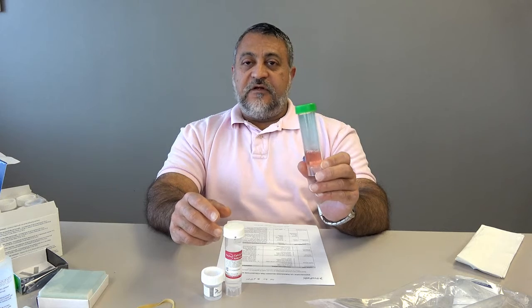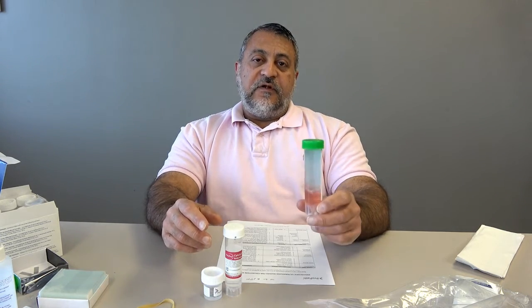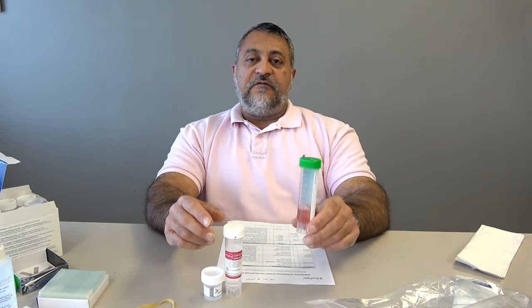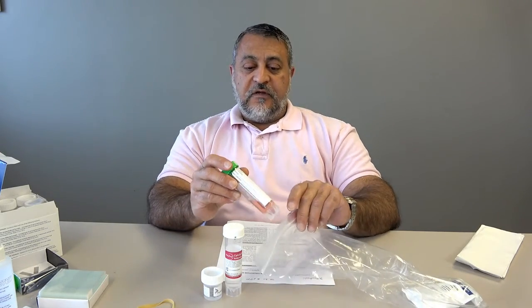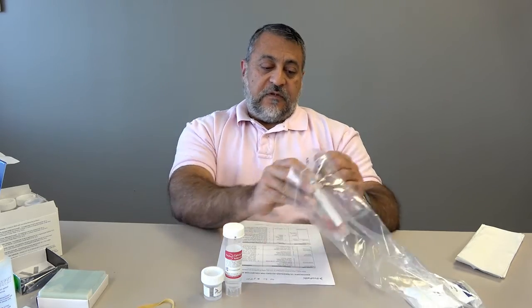So this is not something you're going to use a whole lot, but it will be useful in cases where you have somebody with a history of lymphoma, history of leukemia, or you're worried that the patient may have lymphoma. So that's all I'm going to say about the RPMI. We should provide it to you if you'd like, if you need it, or you have a patient that you're concerned about.